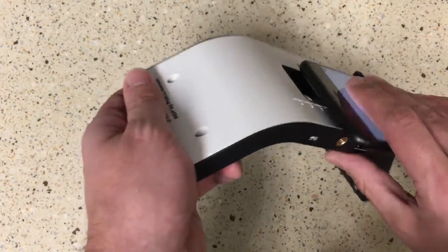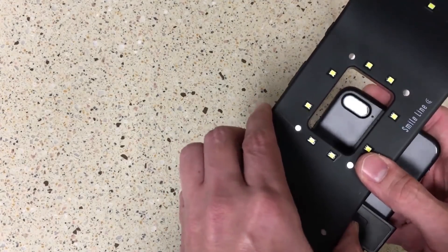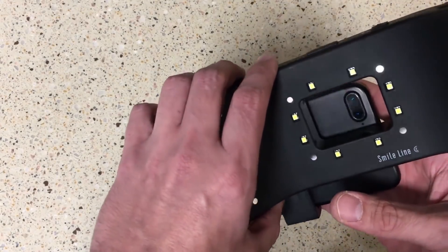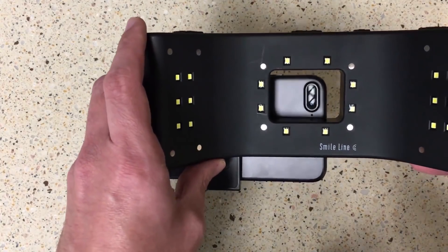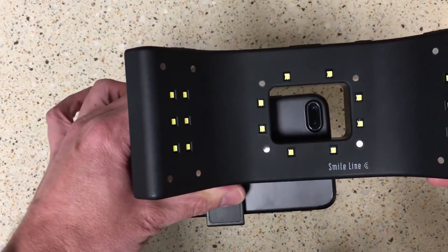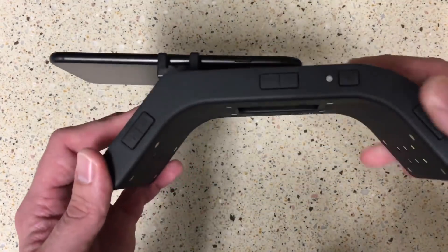I'm just going to slide this in here. The key is to center your camera in this little aperture in the box — if you do that, you're going to get the right depth of field and the right exposure with the lights. There we are, that's pretty much centered. Now there are two cameras on the iPhone 7; you don't have to worry about that on any other iPhone, but that top camera looks fairly centered, so we should be in good shape.